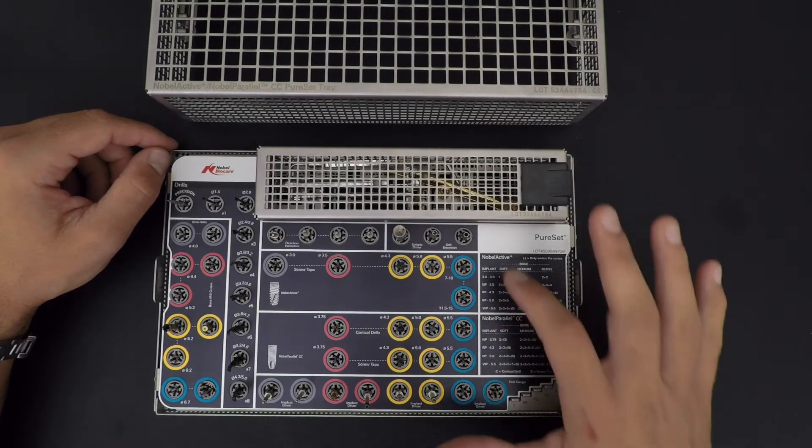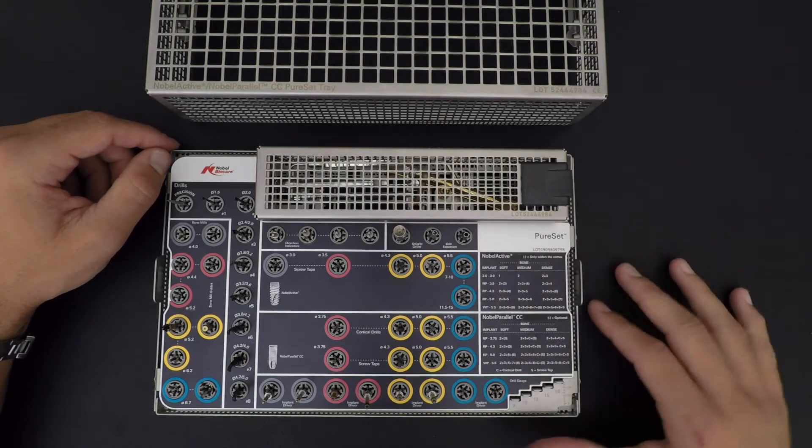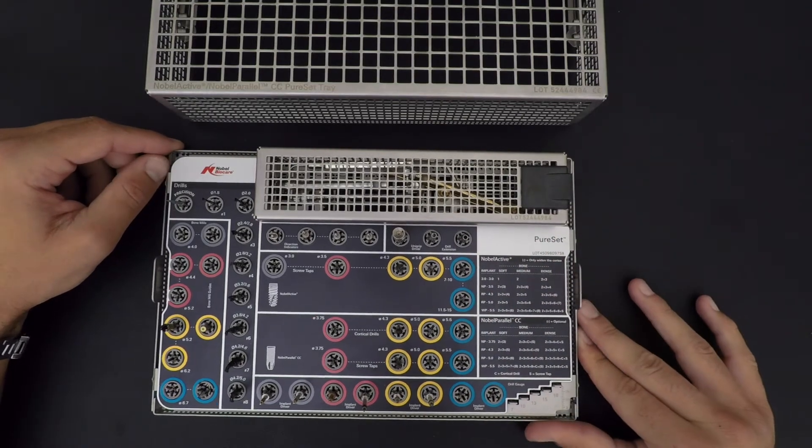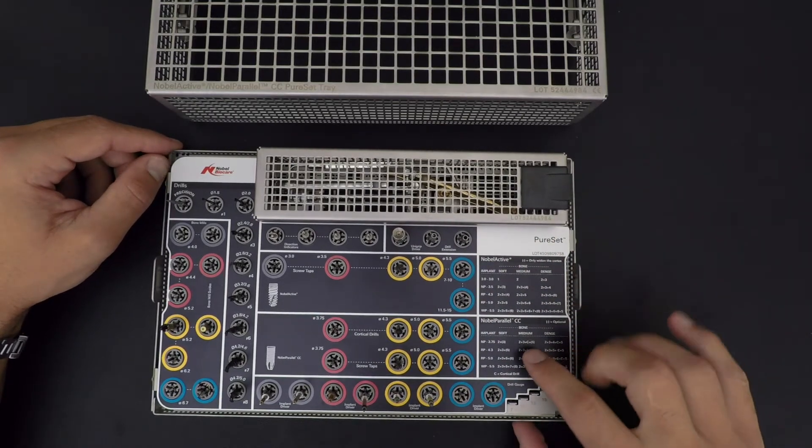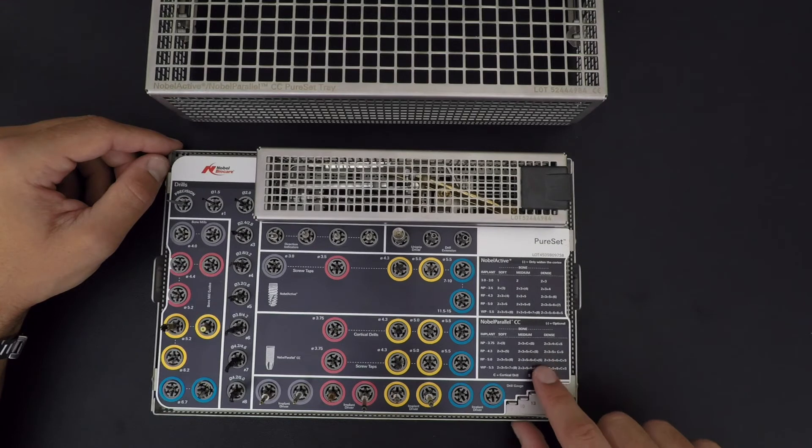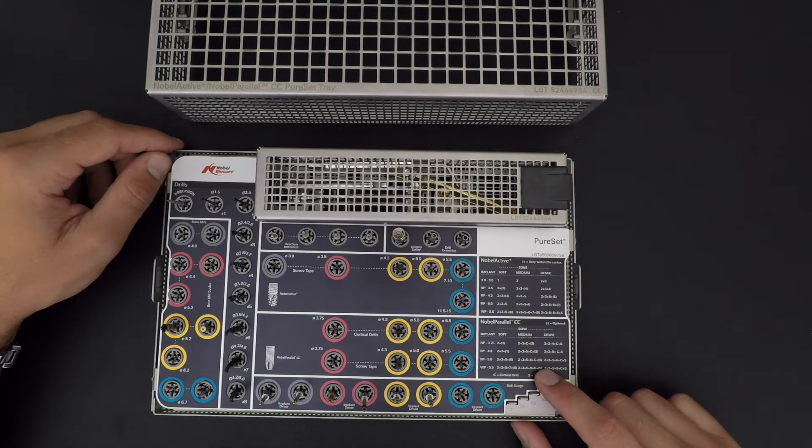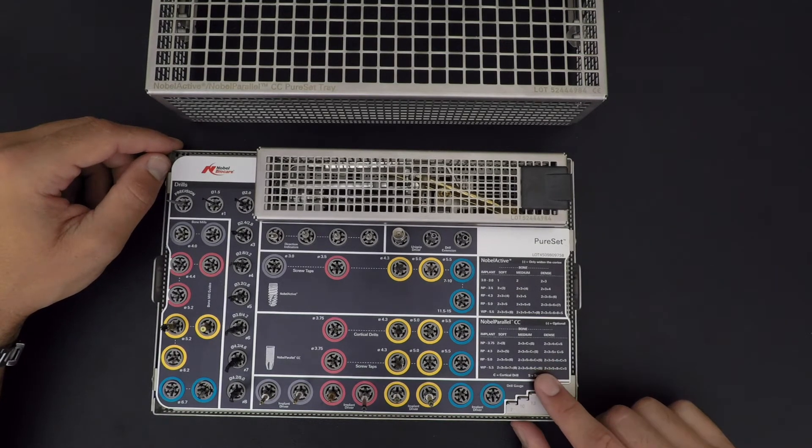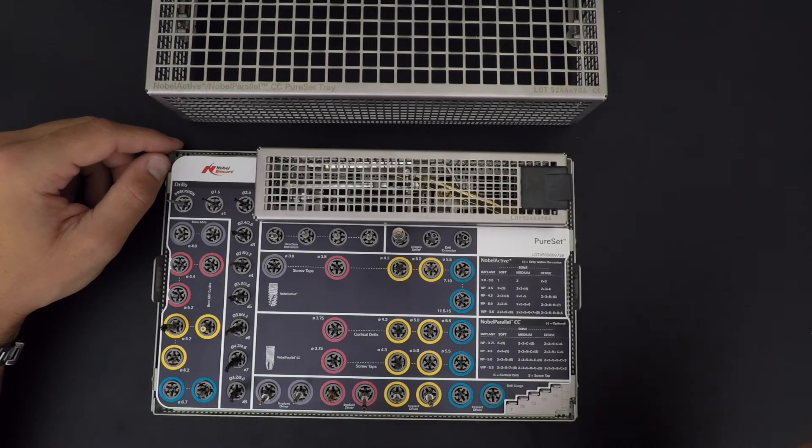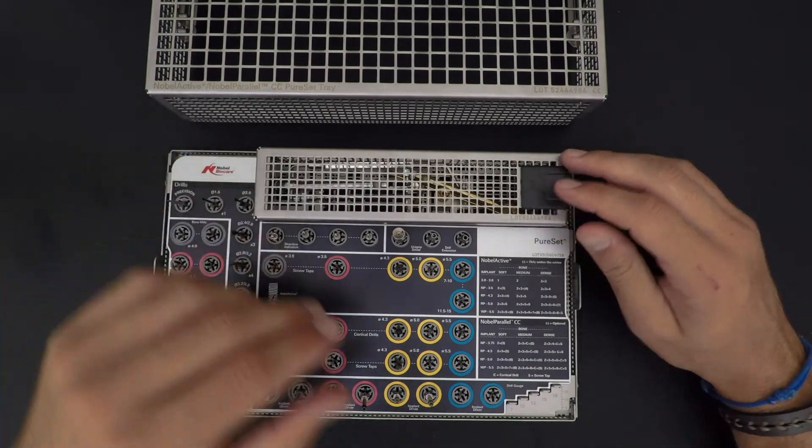I have to mention that you get some brackets here. The brackets means the drill is optional - you don't have to use it. If the implant goes in smoothly, you're fine. You push this like that, you can just lift it, remove it.